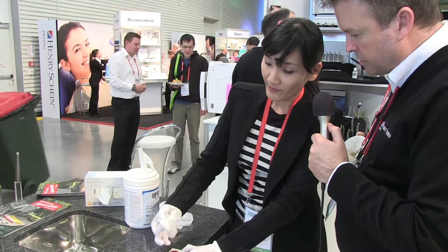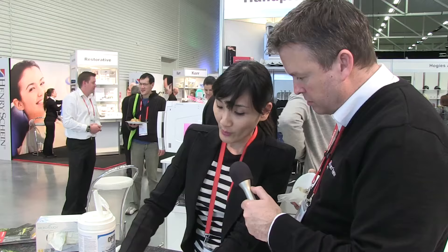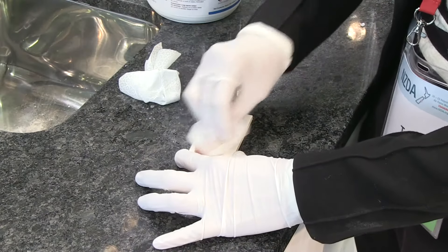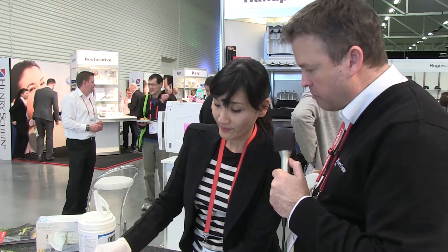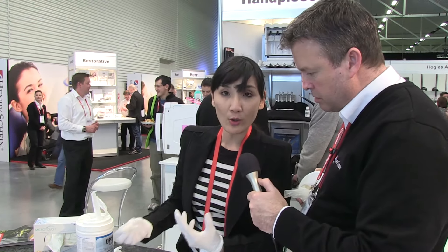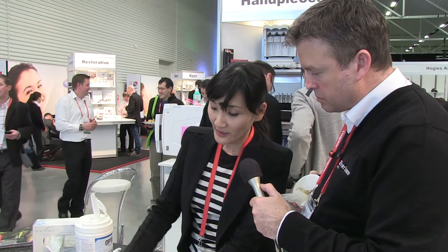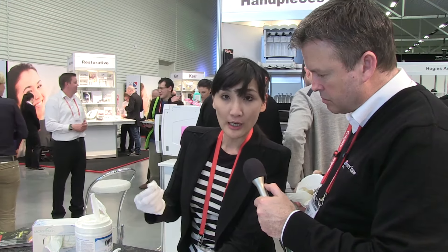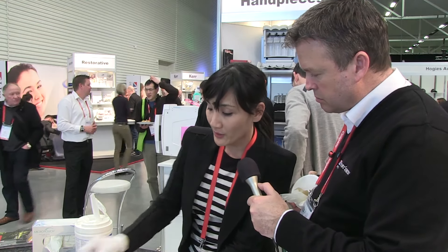It's not really breaking it up — only a little bit. This is really by pure force; if I'm scratching it, it will clean, but if I'm doing it normally it doesn't really do the job. You have to press down hard to get any movement. Organic debris like blood is very difficult — in a sense, alcohol almost fixes the protein onto the surface.